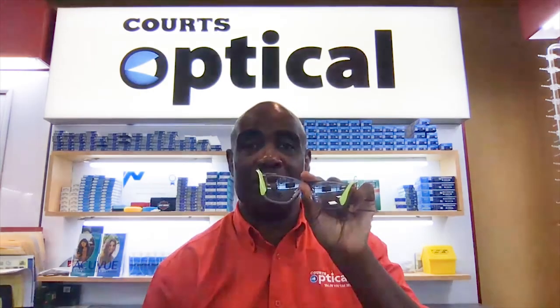Use the right cloth. We suggest using a microfiber cloth, which is lint-free and ensures that you keep your frames completely clean. When cleaning, pull from the middle section of your frame and use your microfiber cloth in a circular motion around both sets of lenses.